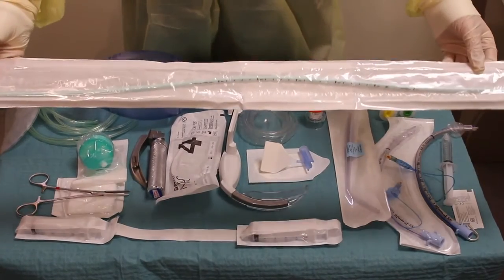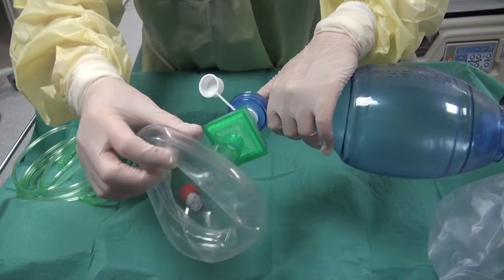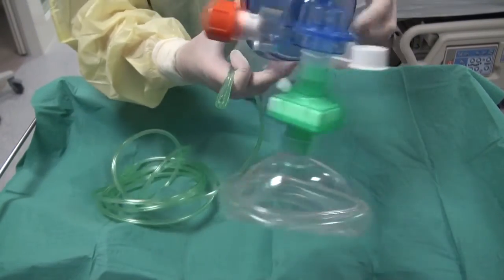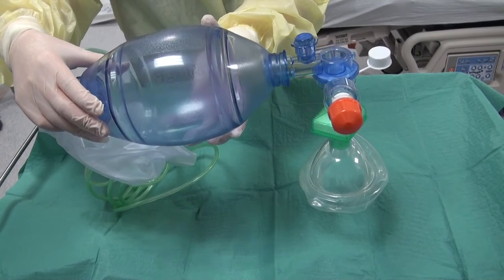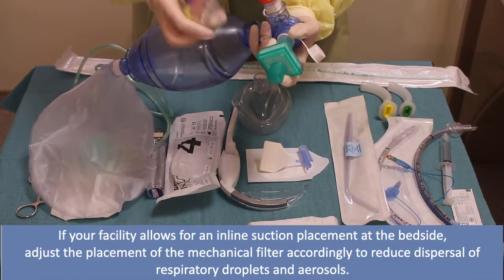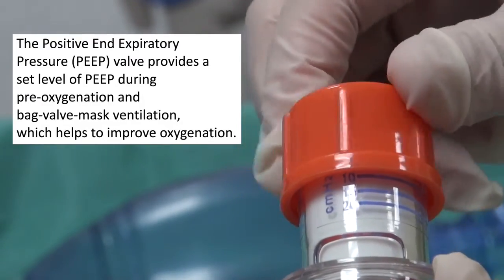Here is the direct laryngoscope and similarly you have to make sure that it's working well and that the battery and light are working. Here is the clamp which we use in COVID-19 patients to minimize aerosolization of droplets. And here is an HME or heat and moisture exchanger. We also prefer to bring in a bougie. Here we are setting up the bag-valve mask device. First is the mechanical filter that we are attaching, followed by the mask. Next is the PEEP valve, and when you attach it make sure it's fitted securely otherwise it may fall out quite easily. And don't forget the oxygen tubing as well. By rotating the top of the PEEP valve, you can determine what level of PEEP you want to set.